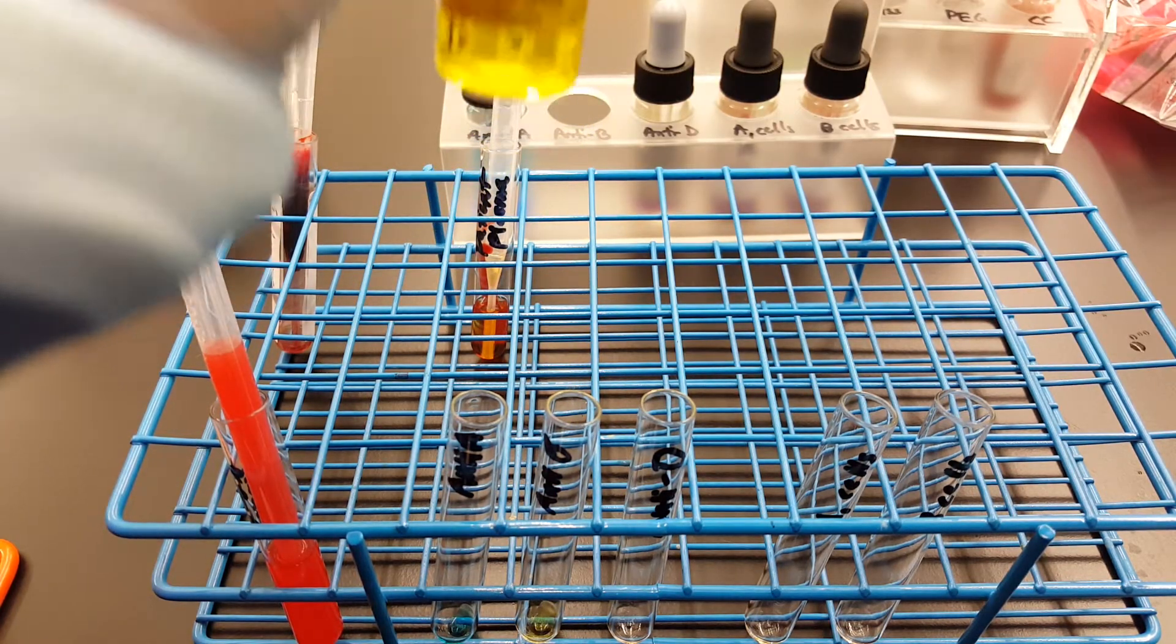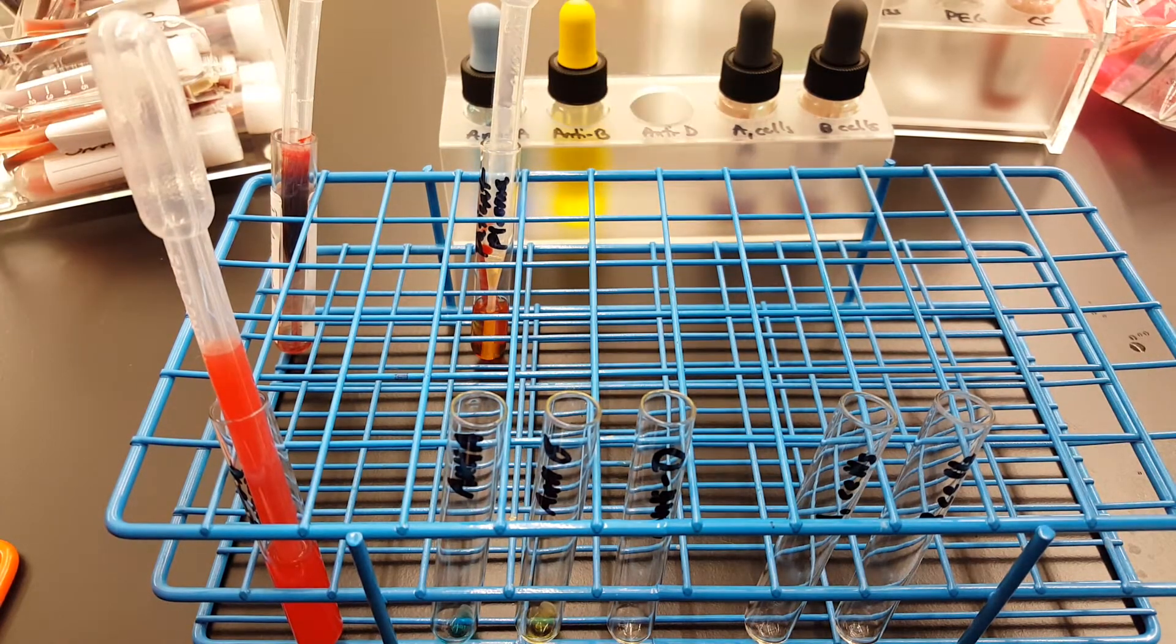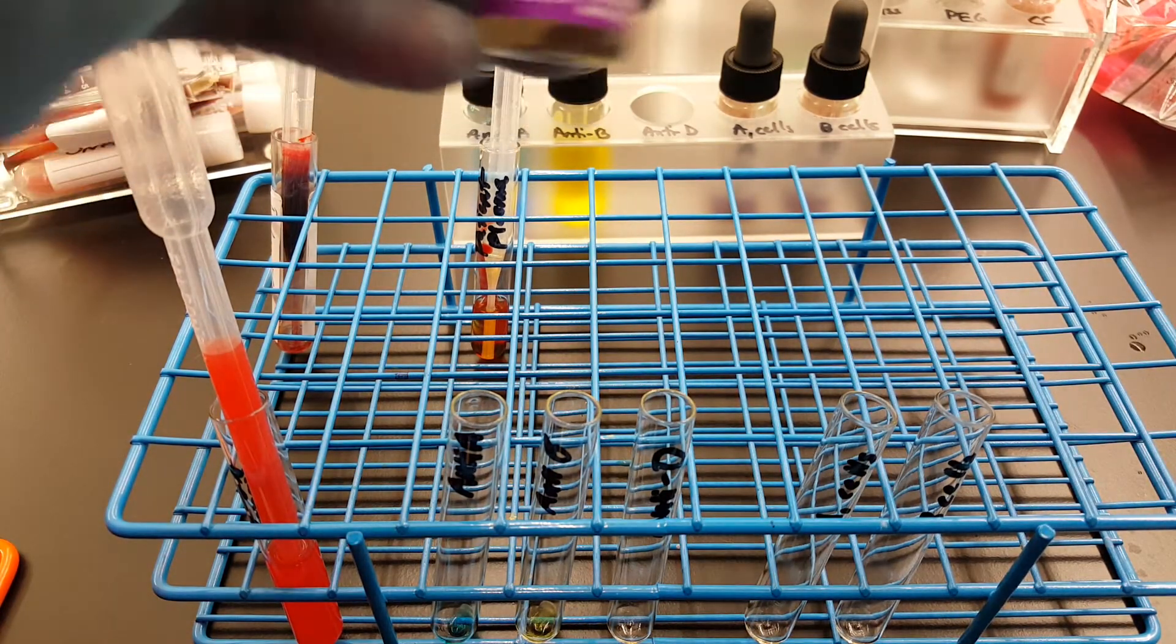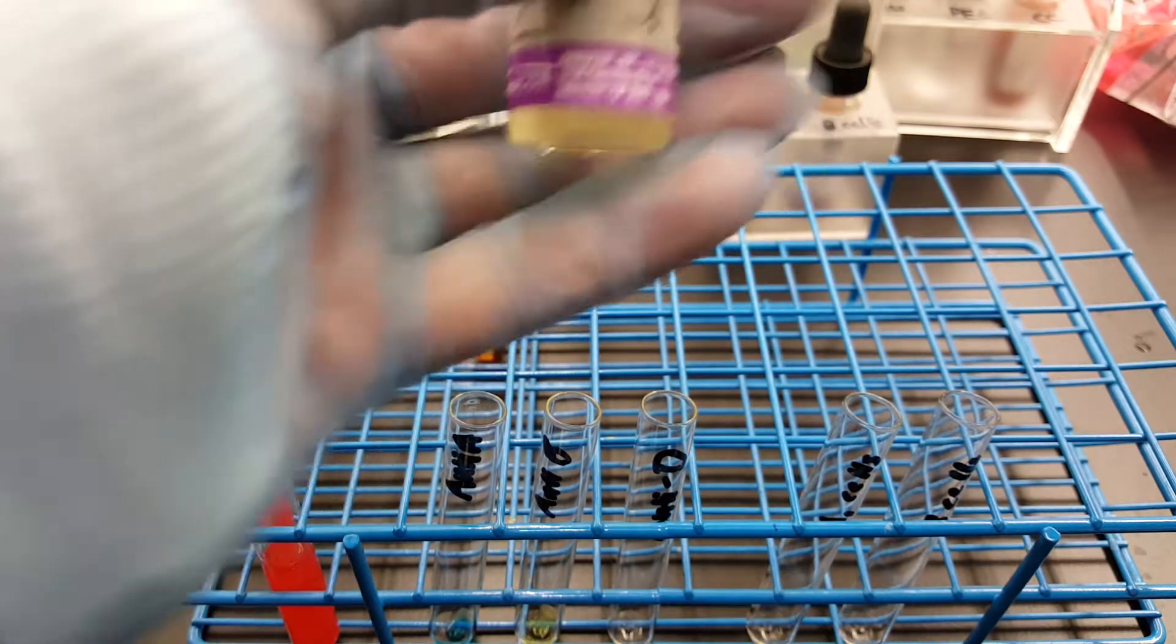And then we're going to do anti-D, which is what everyone calls the RH reaction. So anti-D here, one drop.